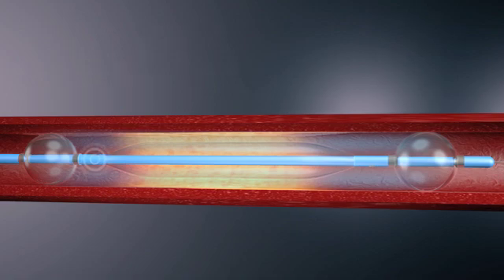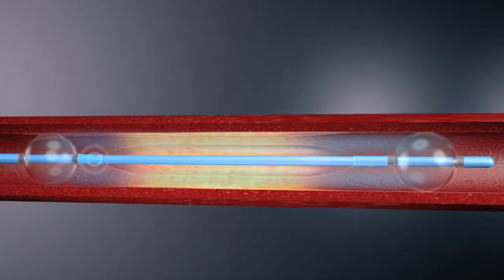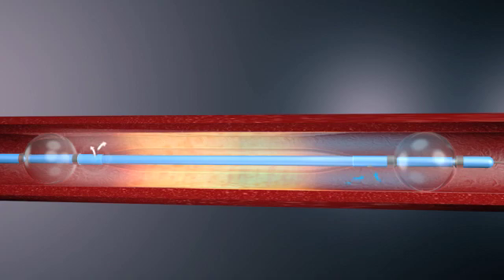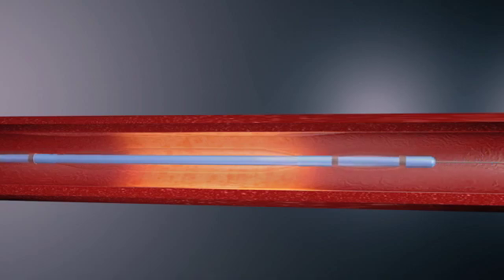When the therapy is completed, the space-occupying balloon is deflated and the excess agent is evacuated from the chamber to control systemic effect. The occlusion balloons are deflated, re-establishing blood flow.